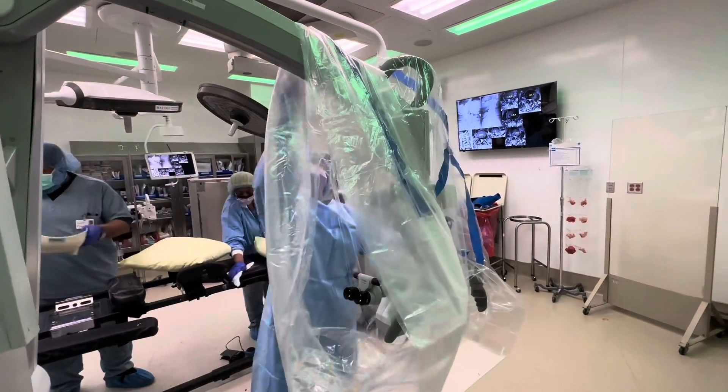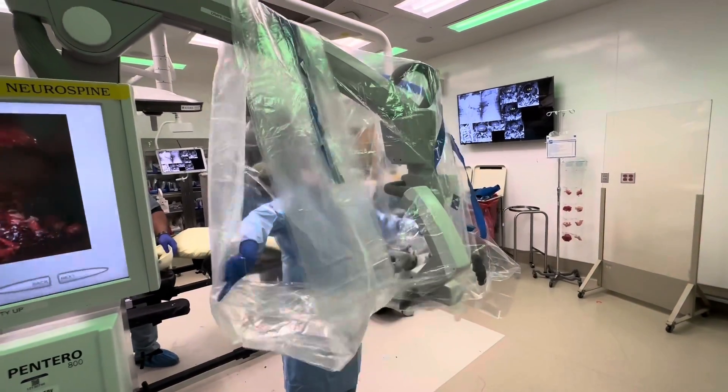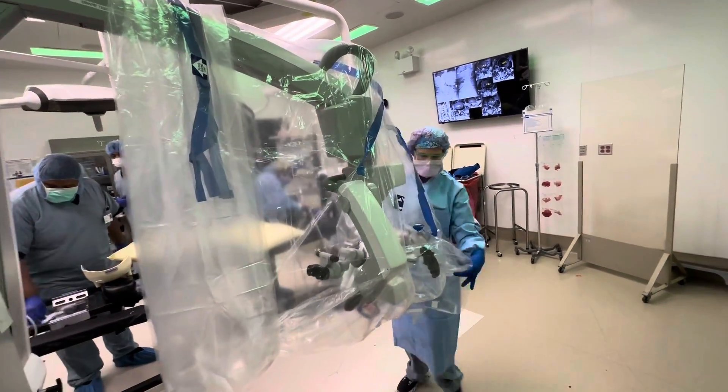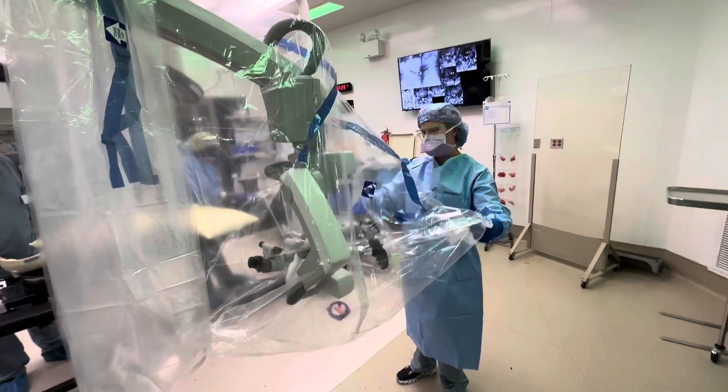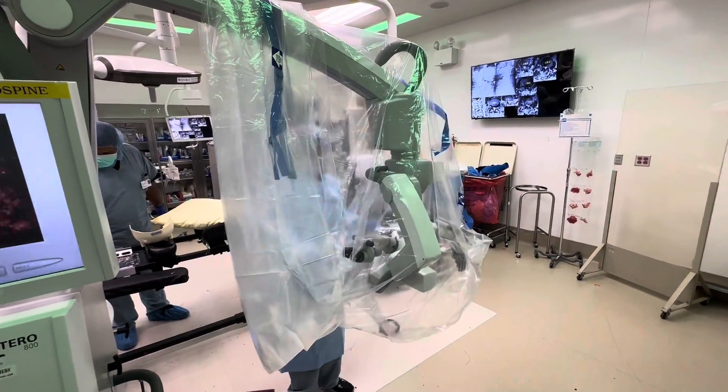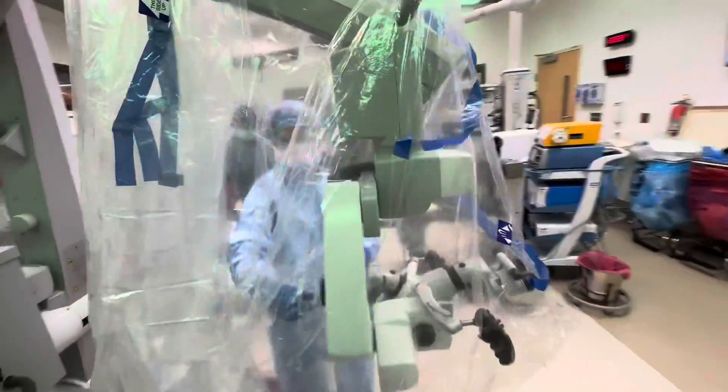Pull a little bit. If you can't gauge who's going to be holding, you need your assistant — there's always an assistant.